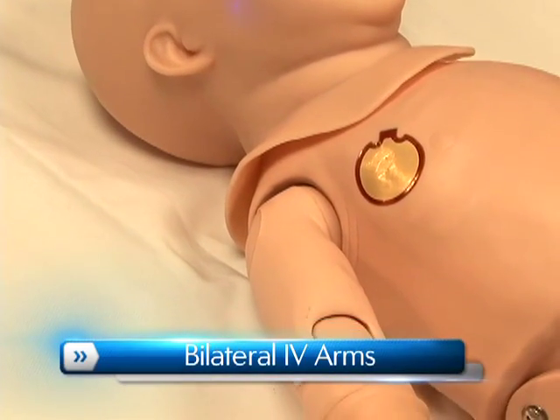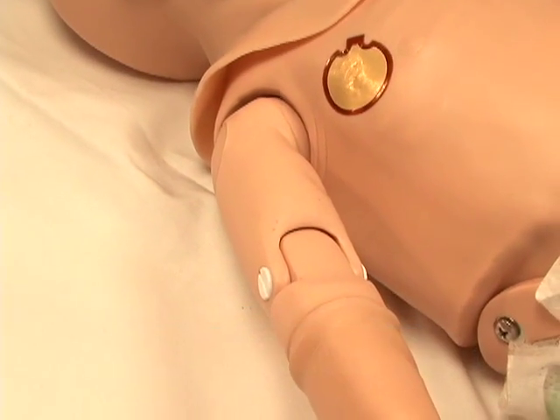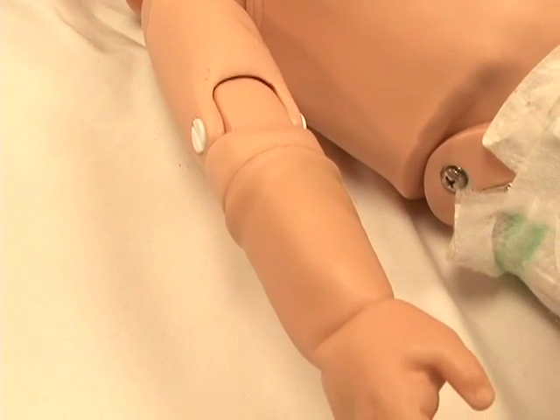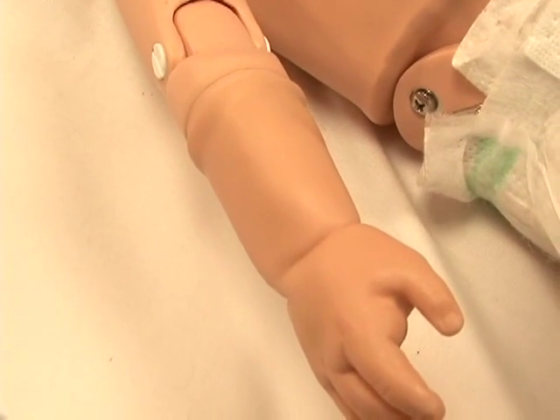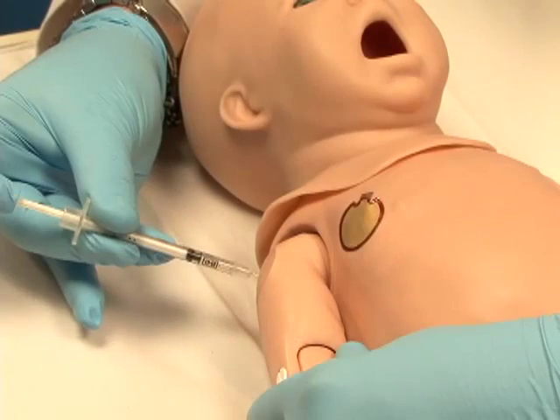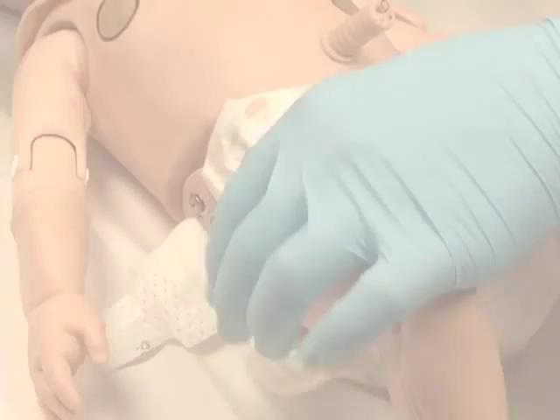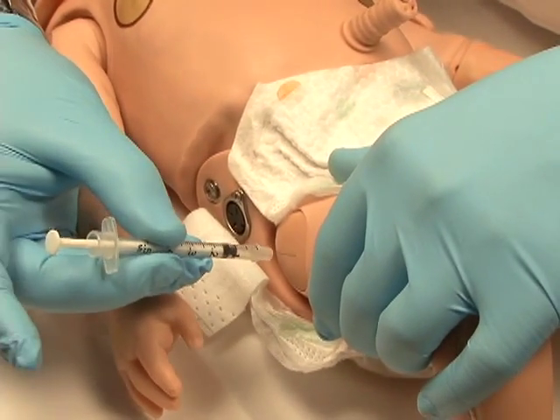Newborn HAL has bilateral IV training arms that can be used for bolus or intravenous infusions, as well as for drawing fluids. In addition, he has IM sites on both his deltoids and quadriceps.